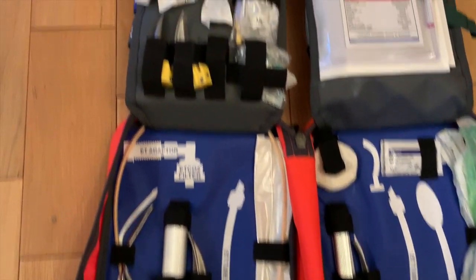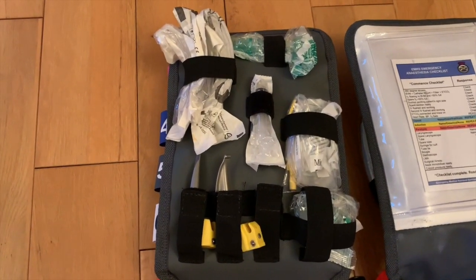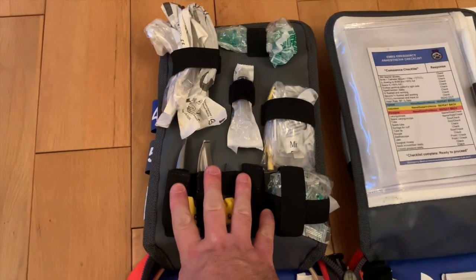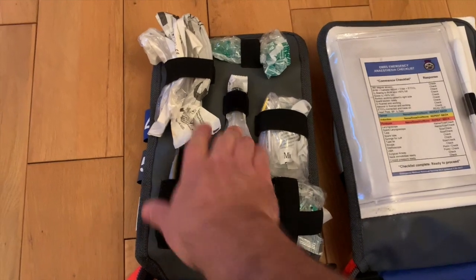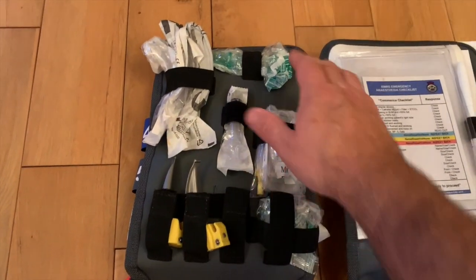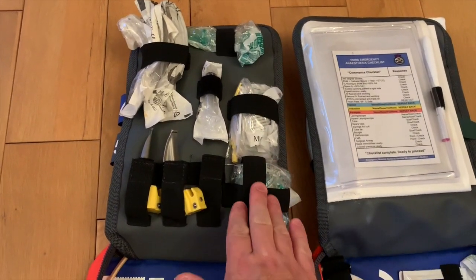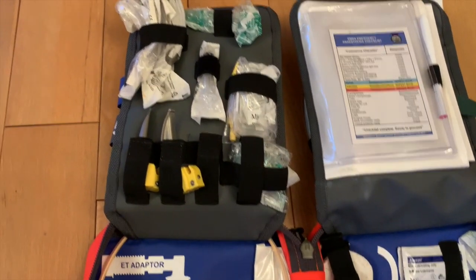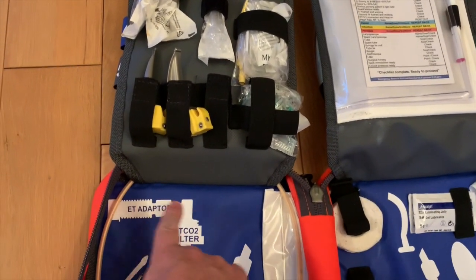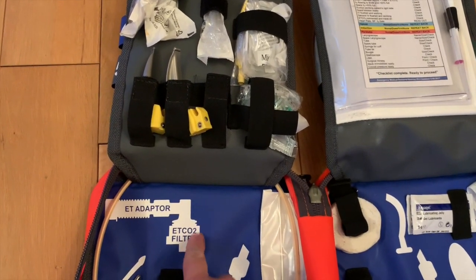Moving to the equipment for intubation, all of the kit is readily available and easily accessible — with your spare blades, syringe, blades for your VL device, ET adapter, end-tidal CO2, and filter. These follow the correct orientation so as to protect your end-tidal CO2, as you can see in the drawing: your adapter and end-tidal CO2 coming before your filter.